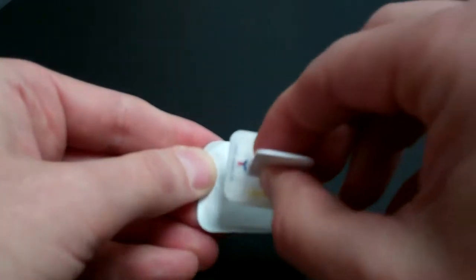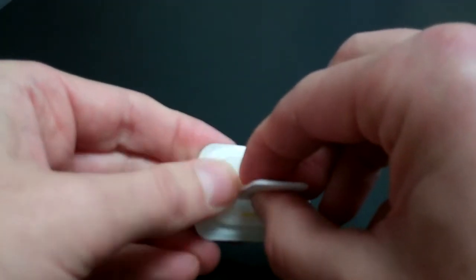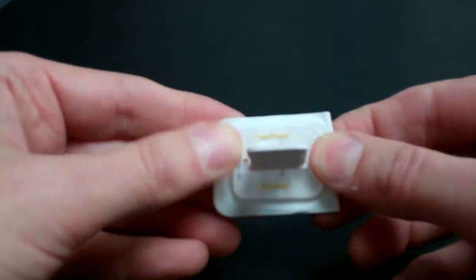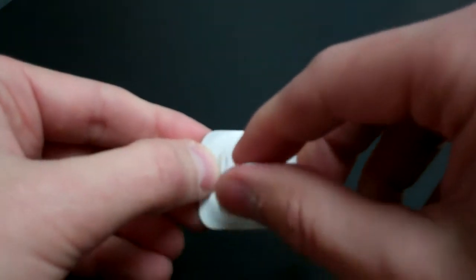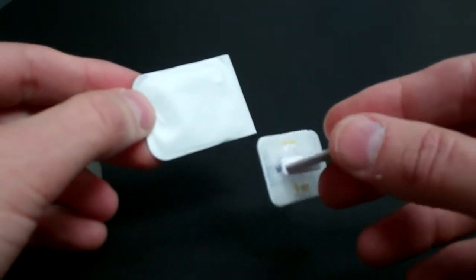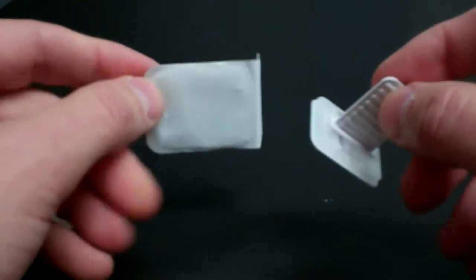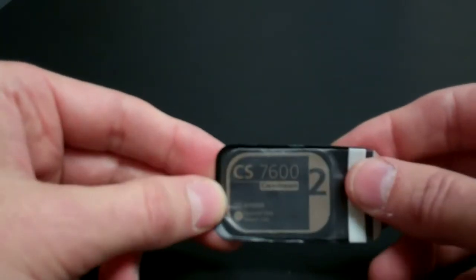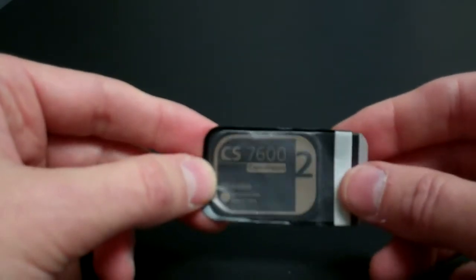If you want to adjust how you have it centered on the film packet or phosphor plate envelope, it's no problem. This is a repositionable adhesive, so this one bite block can be used for a full mouth series with 18 sets of film or, in this case, we're demonstrating with the CareStream 7600 phosphor plate.